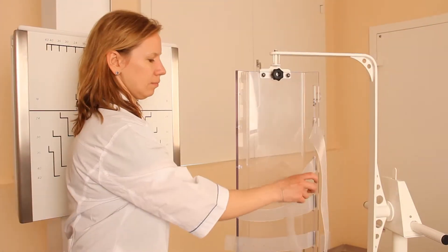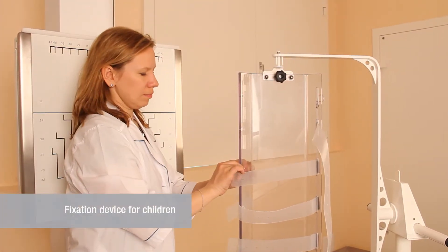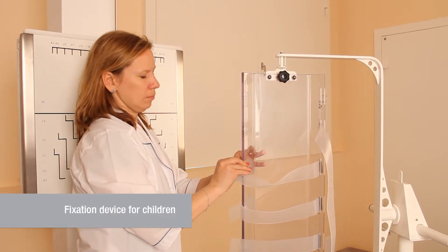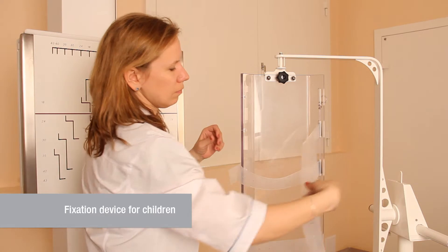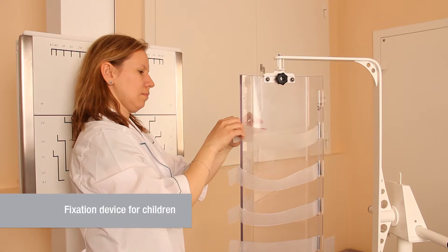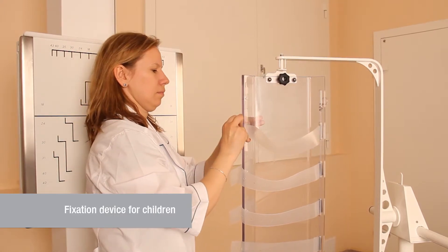A special device allows fixing a neonate or an infant in a proper position for obtaining high quality images. Infants and neonates are fixed with silicon bands that are easy to remove in a case of emergency.